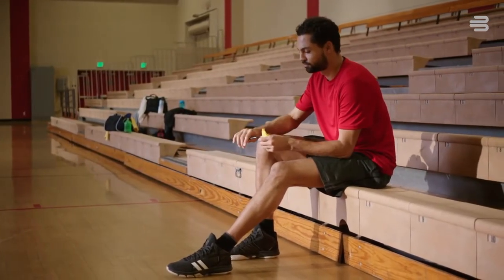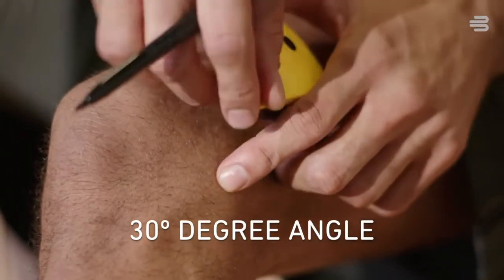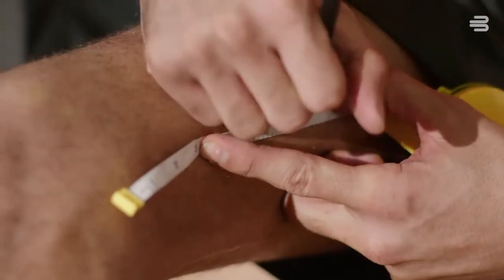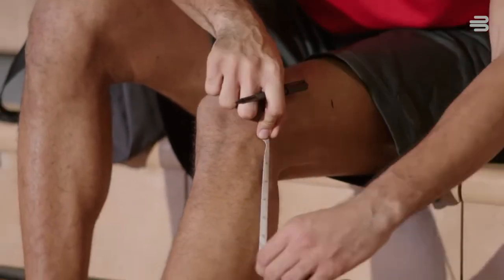To find the best size for me, I start at the center of my knee, making sure there's a slight 30-degree bend in my leg. Then I measure up the outside of my leg 14cm, and then down 12cm.